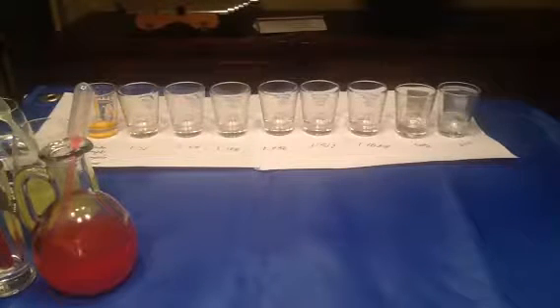Since we're going to shorten the time, I'm going to show you how to look for agglutination in the test tubes. The first one I'm going to show you, sorry, I can't control the light very well, but this shows no agglutination. This is negative.